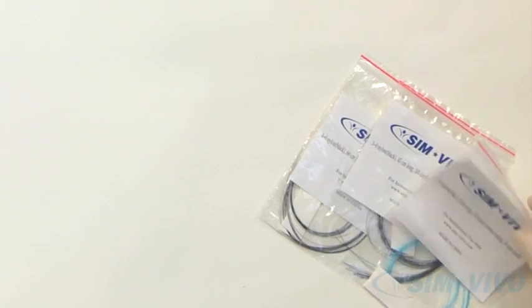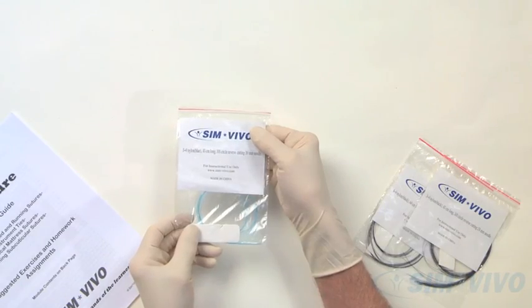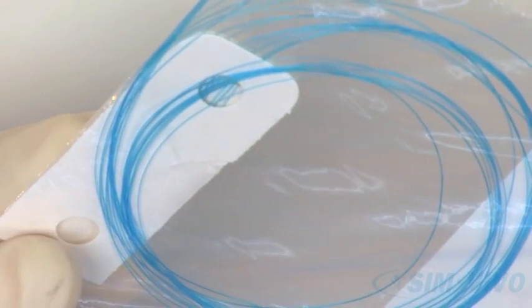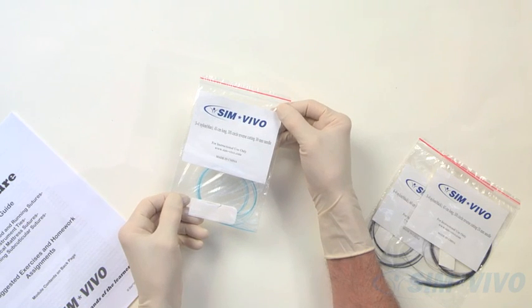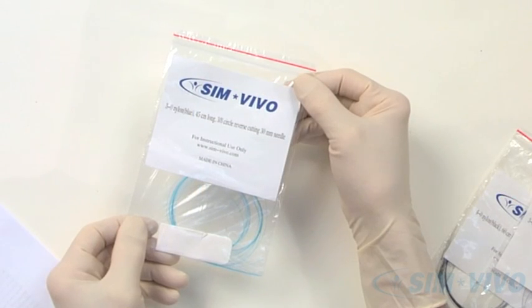You will find three bags of sutures containing 10 sutures each. One is a 3-0 nylon with a 30 mm curved reverse cutting needle. This is larger than the standard skin closure needle that, by its size, will introduce you to the principles of suturing.